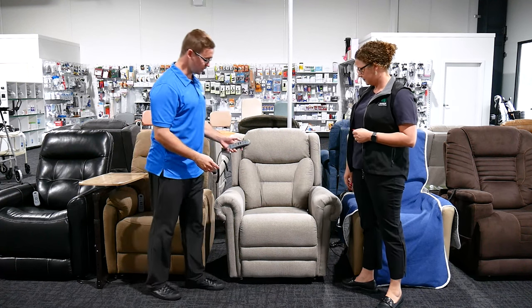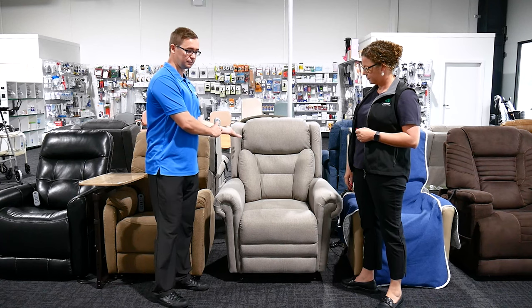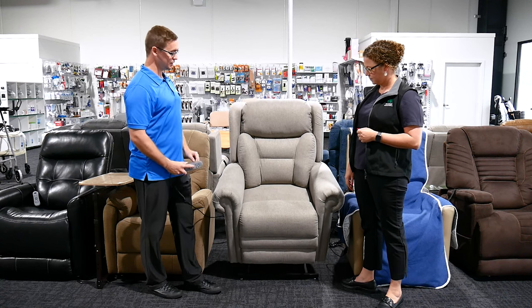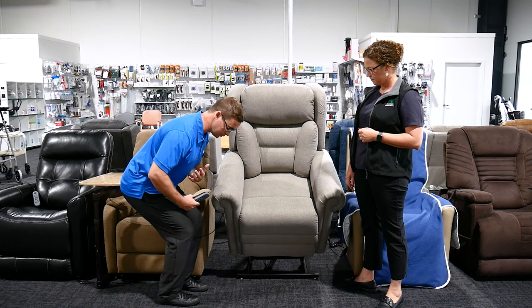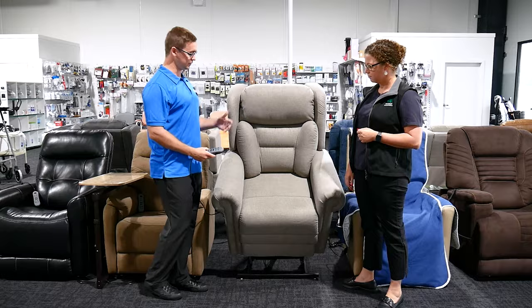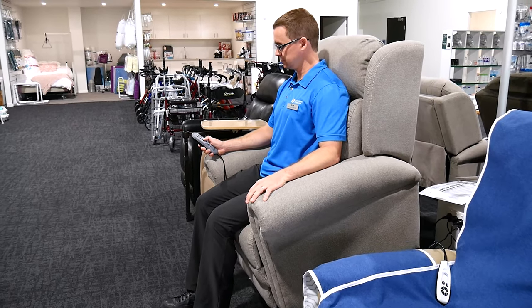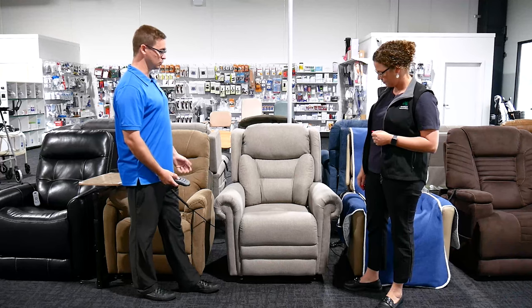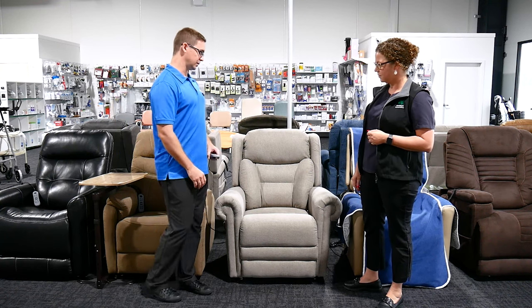On this model with the lift feature — and I'll lift the chair up now — a lot of recliners simply tilt in space and mostly just push forward. This model tilts but at the same time lifts, and that gives a more natural sit-to-stand function. When somebody is moving from sitting to standing, it's a combination of forward horizontal movement but also vertical lift. You can see from the side how that vertical lift combines with horizontal movement, and it's just a more comfortable movement for somebody living with loss of strength — it will be more supportive on their lower limbs.